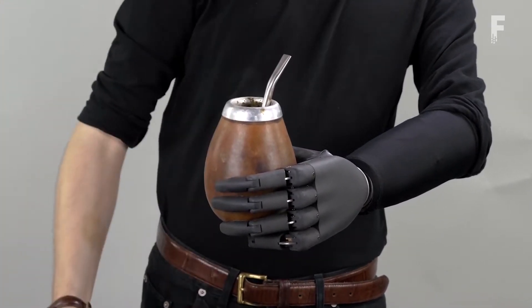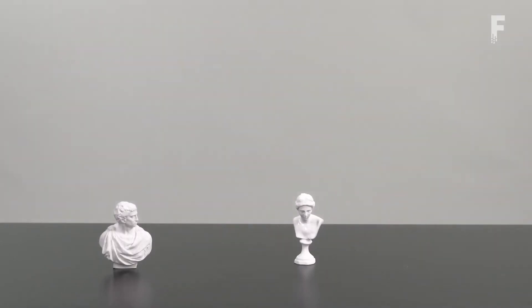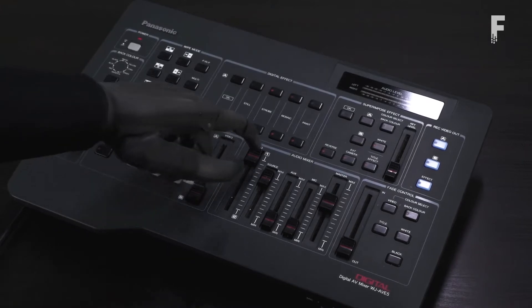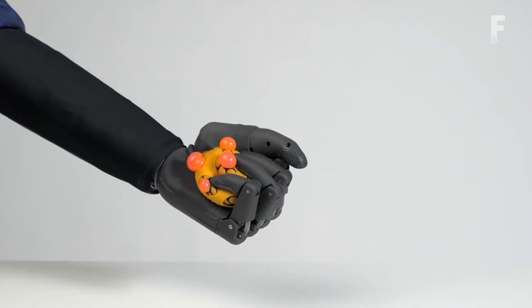A natural silicone glove, available in 10 color options, is designed to be close to the human anatomy and skin color. EMG electrodes use advanced signal processing and provide wireless gain adjustment. The sensitivity and smoothness of the signal can also be manipulated.